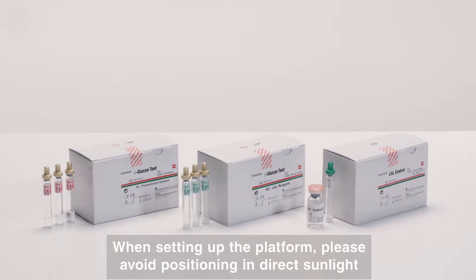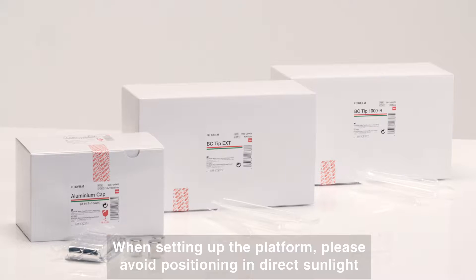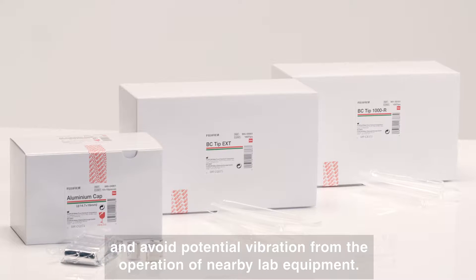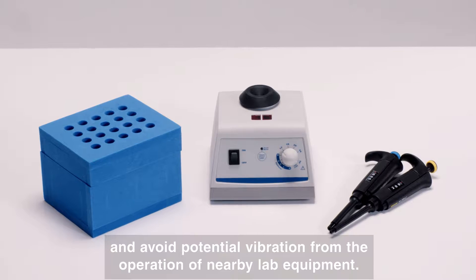When setting up the platform, please avoid positioning in direct sunlight and avoid potential vibration from the operation of nearby lab equipment.